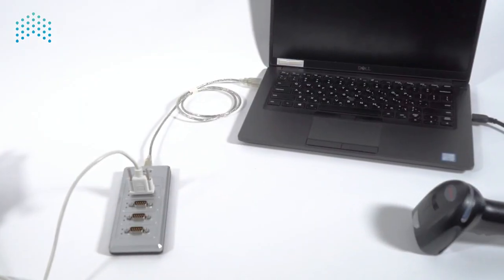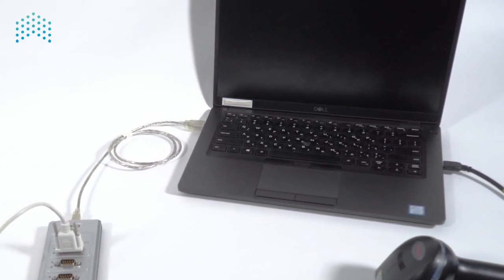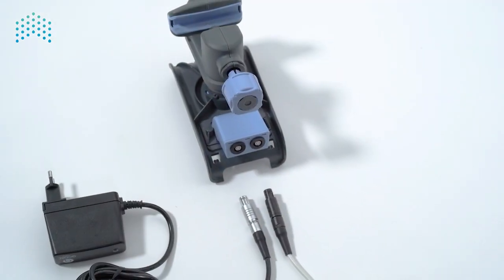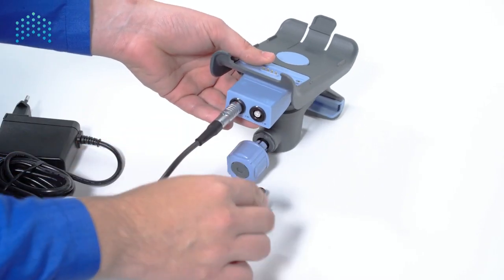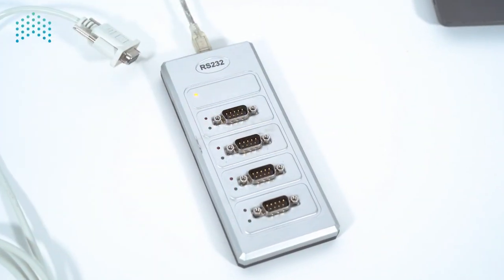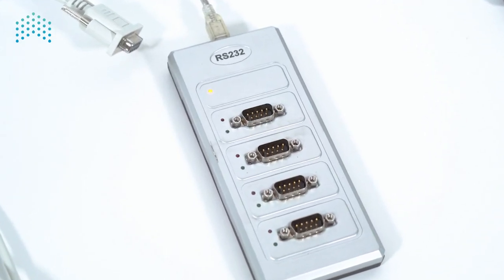To use the pump loader software with the Sapphire Infusion pump, you will need a computer with internet connection and the pump loader software installed on it, a Sapphire communication cable and power supply, both connected to a mini-cradle fitted with a splitter. An RS-232 USB to serial adapter is needed to connect the communication cable to the computer.